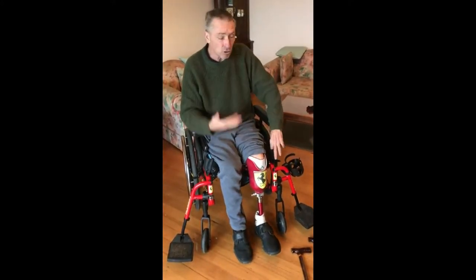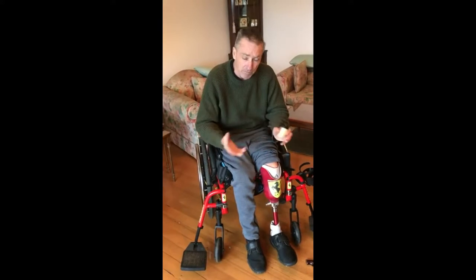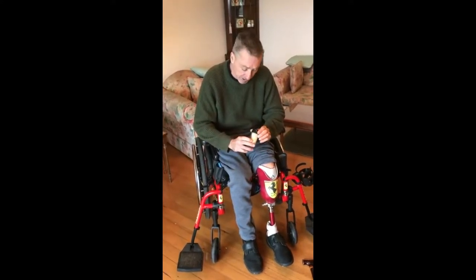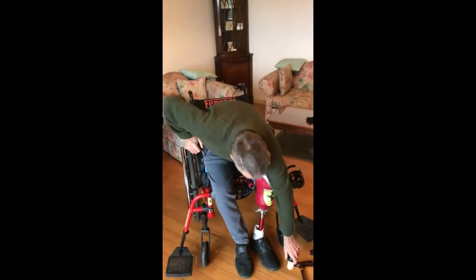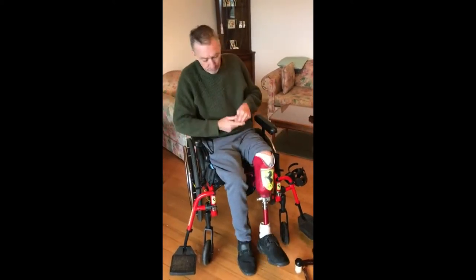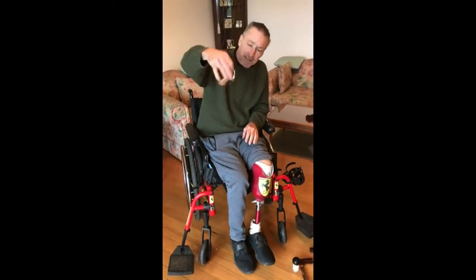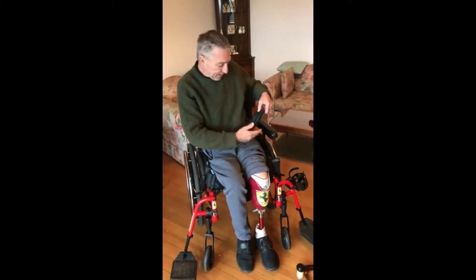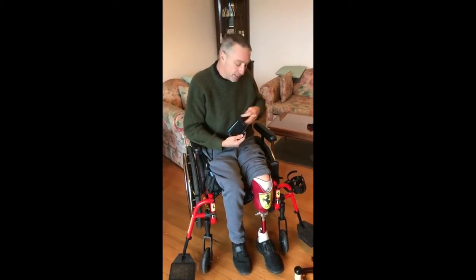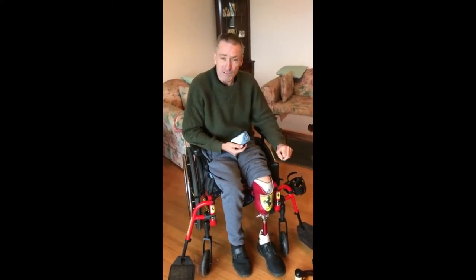Now I'm going to show you what's in the cushion itself. I'm a diabetic, so I've got a blood sugar problem and I have to keep my sugars up. In turn, my teeth are completely eroded at the back — fillings have fallen out — so I need toothpicks every time I have a meal. To release my leg, very simple, I have to use a coin or a screwdriver. I keep my 50-cent piece for pulling out my leg. Mobile phone — easy to reach, can't be knocked off by someone walking past trying to grab it. It's a safe, controlled position.